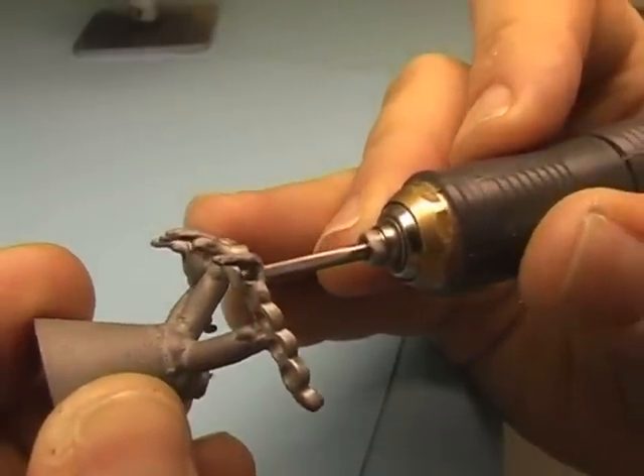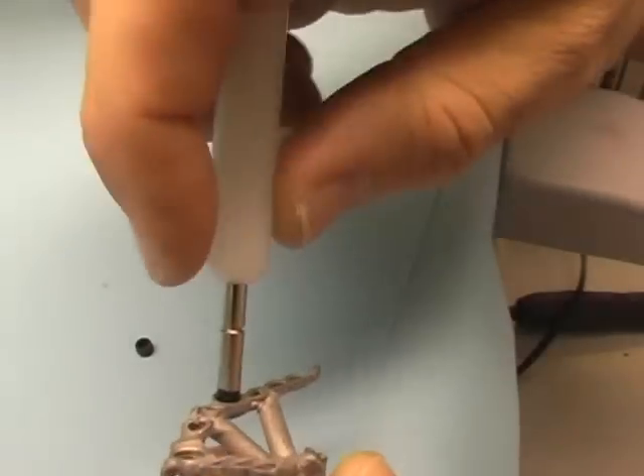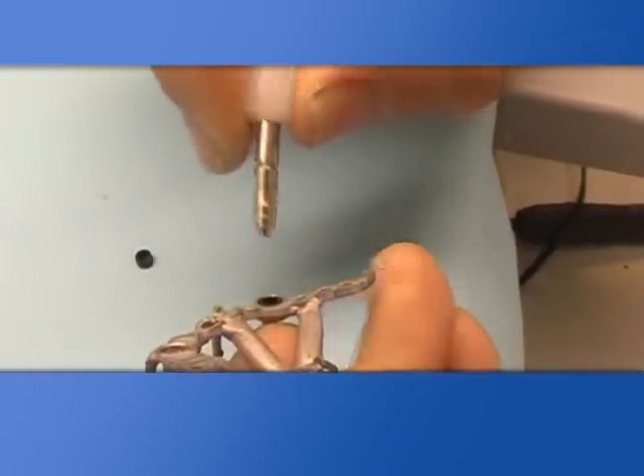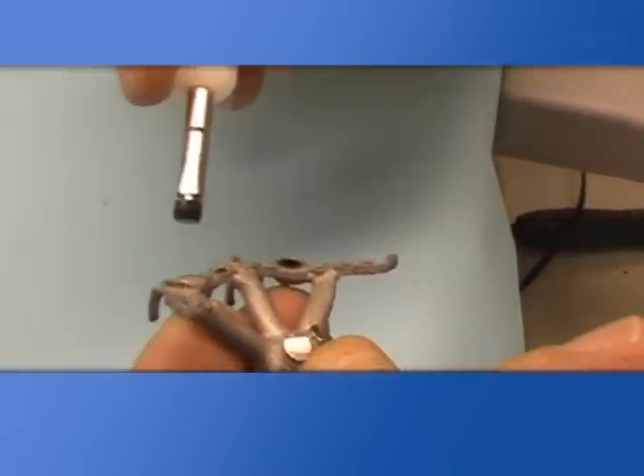Do not wear out cast boxes during refining and polishing. Replace any used black processing cap when work is completed with the proper optimal retentive cap for the project.